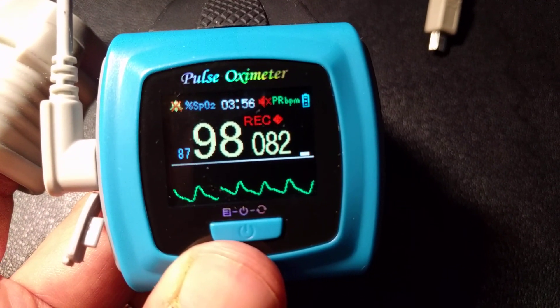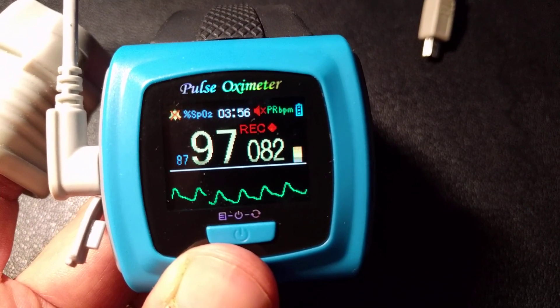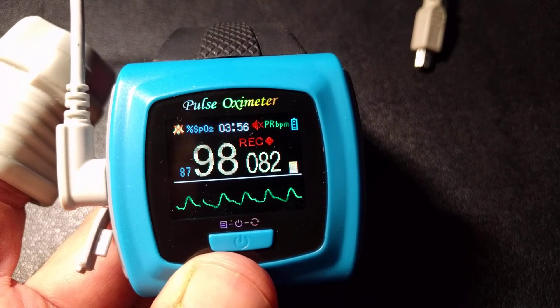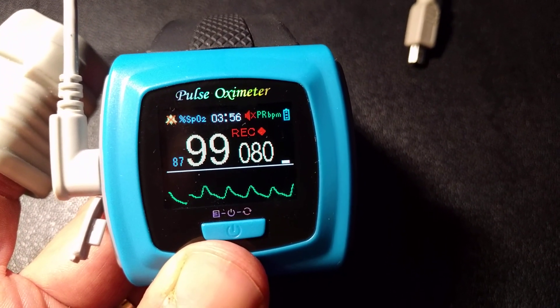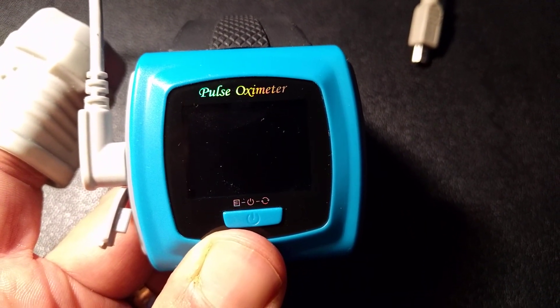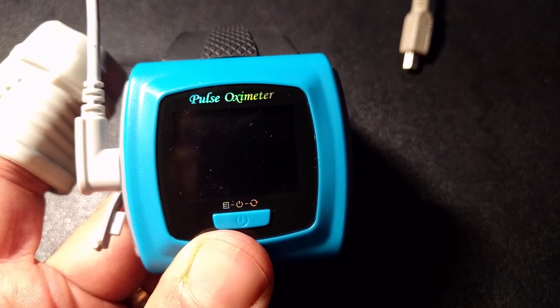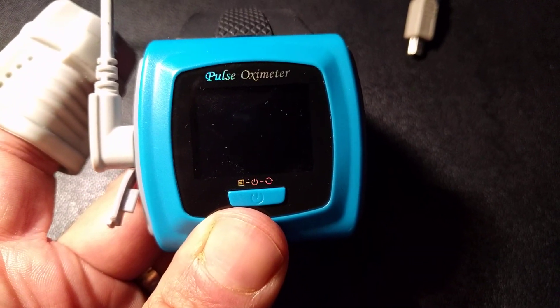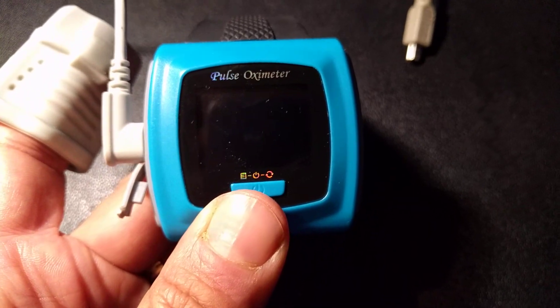Watch it turn off — we'll turn off the recorder in order to save the data after you're done recording your sleep data. When you see it turn off by itself like that, the screen blanks out — that's how it's supposed to look when you're sleeping. It is recording, so go ahead and sleep with it like that. Then, when you wake up, go ahead and push the button.